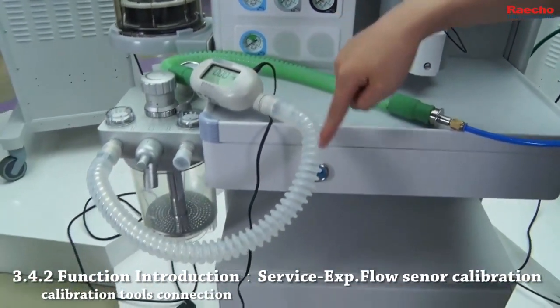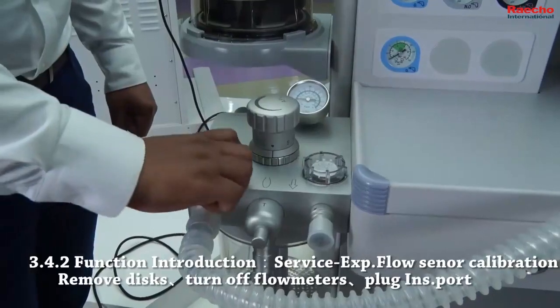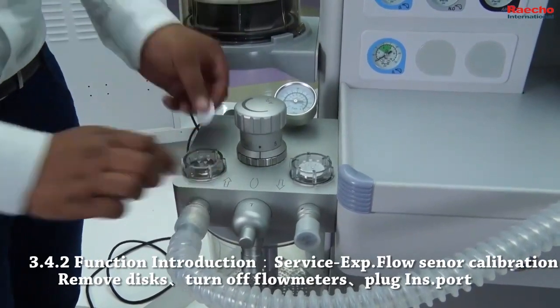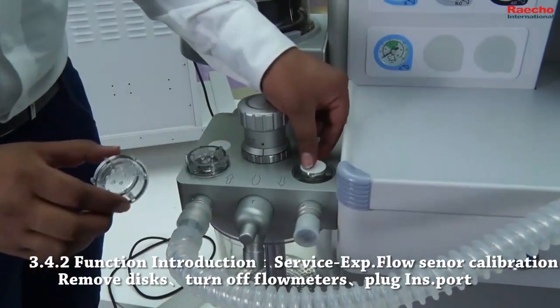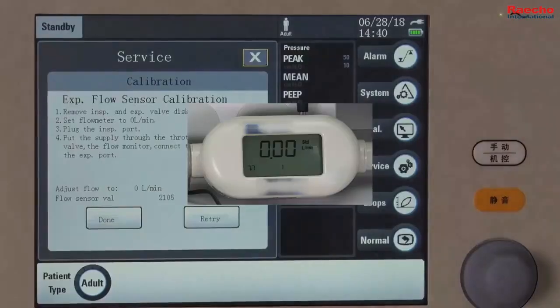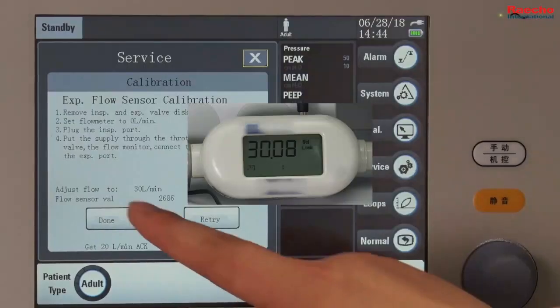Please be aware that this calibration is different than calibration of the inspiratory flow sensor. Make sure to remove discs, turn off all flow meters, and plug the inspiratory port. Except the tube connection, this part of calibration is identical to the inspiratory flow sensor calibration. Calibration done.